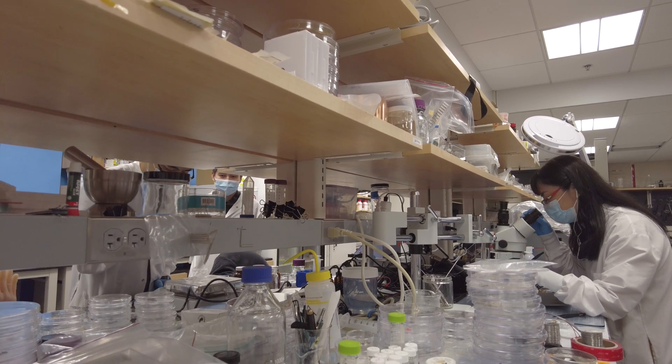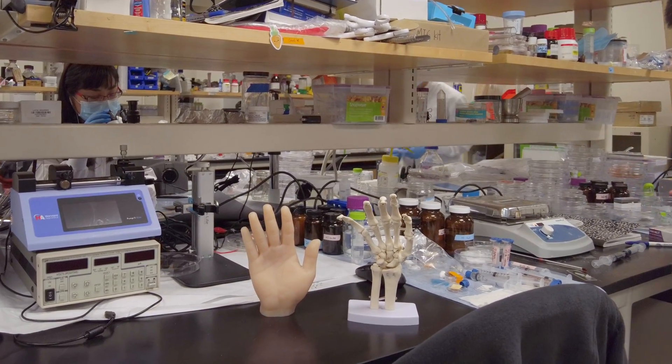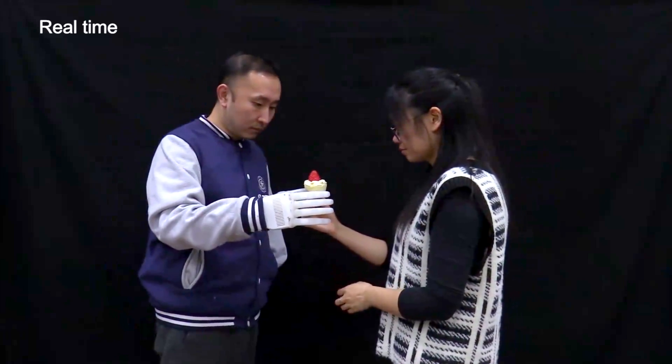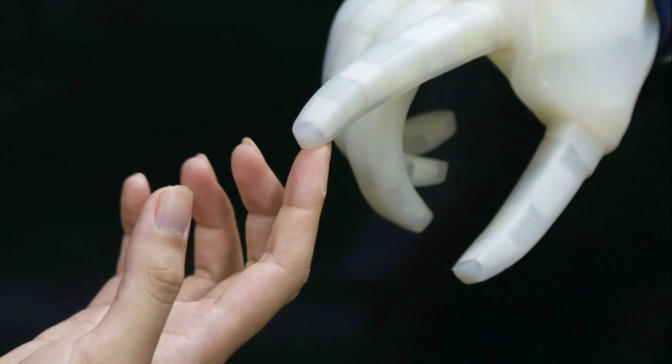The team is now working to improve its sensing and range of motion, which could further their goal of amputees regaining a form of sensation and real-time control using their lightweight, affordable, inflatable hand.